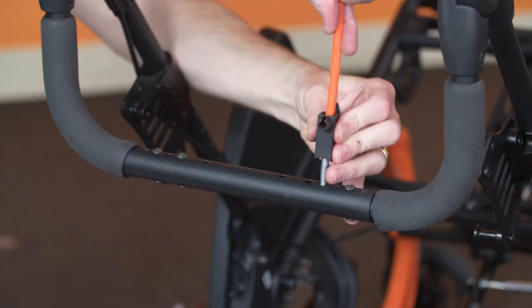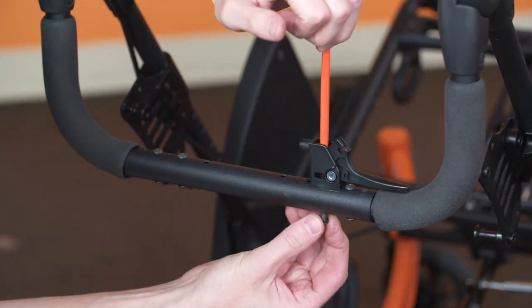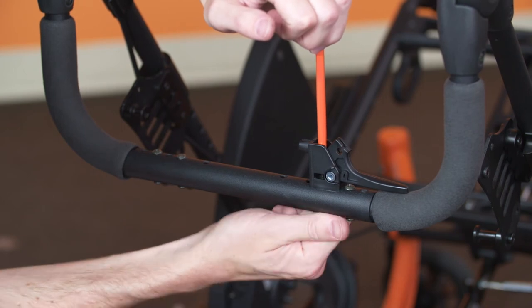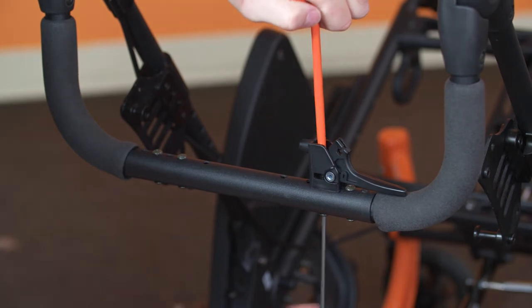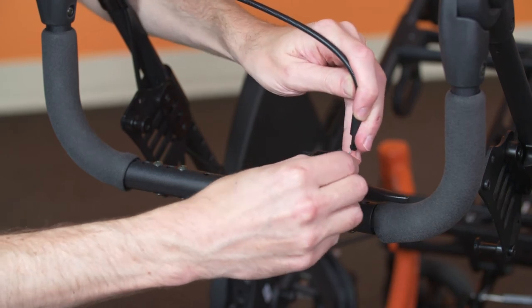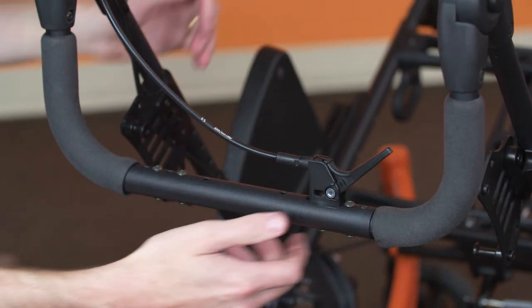If fitted, reinstall the trigger using the inboard push bar fastener. Reinstall the tilt cable: slide the cable termination into position in the handle, then pull the cable sheath through and beyond the trigger mounting base. Finally, use the trigger handle to pull the cable sheath fitting into position.